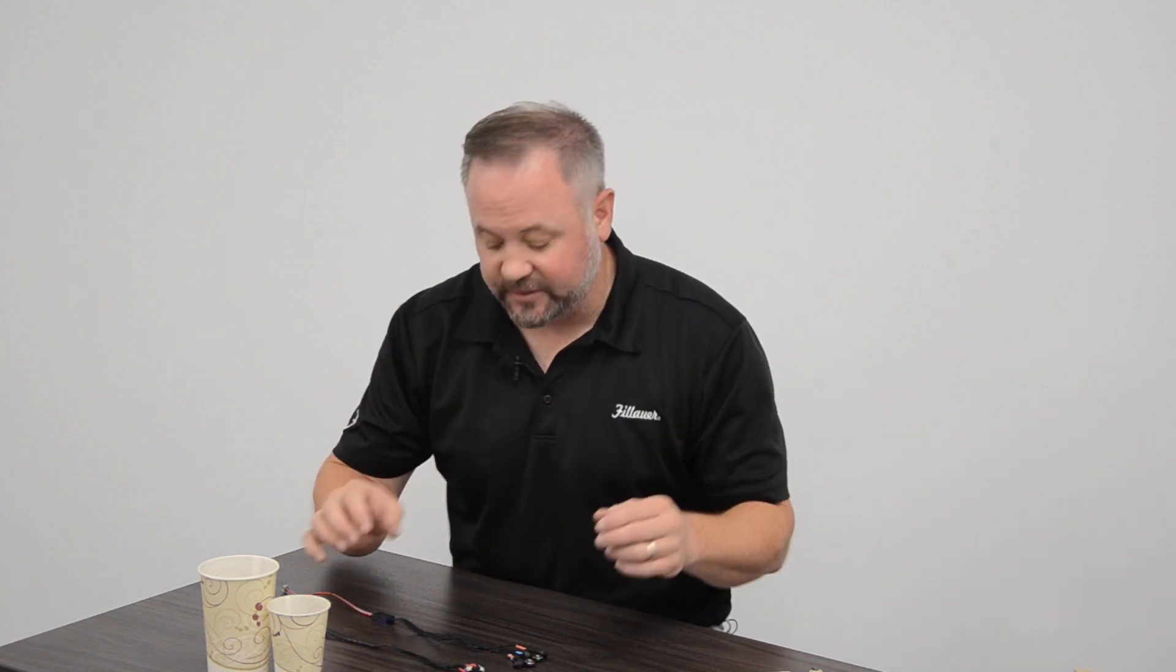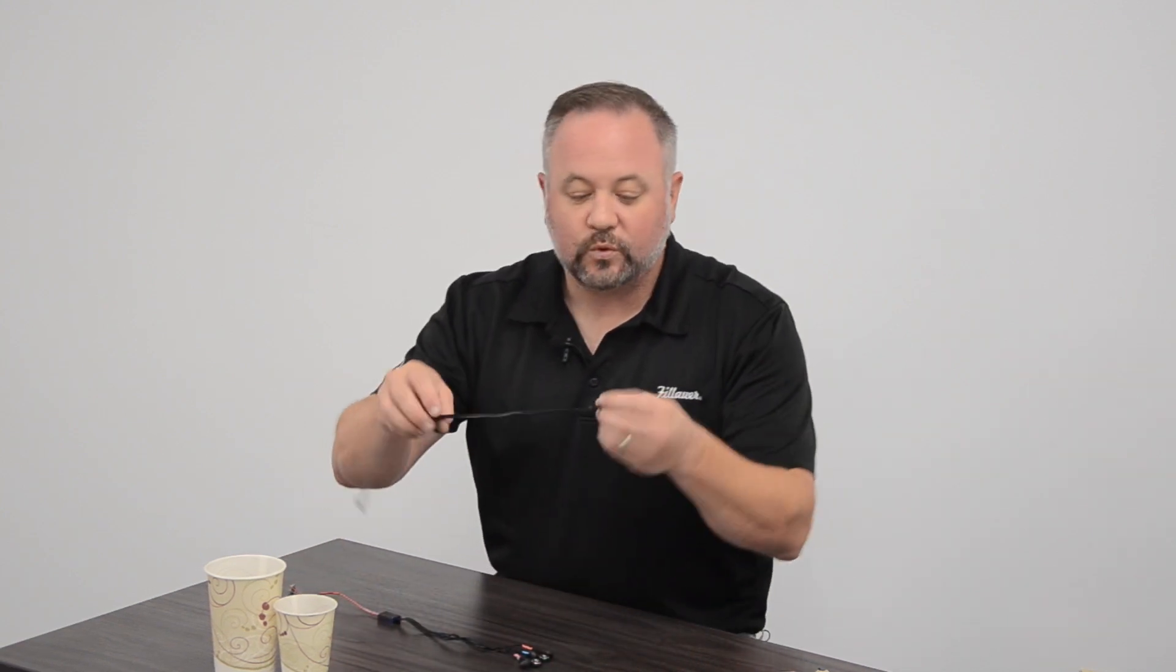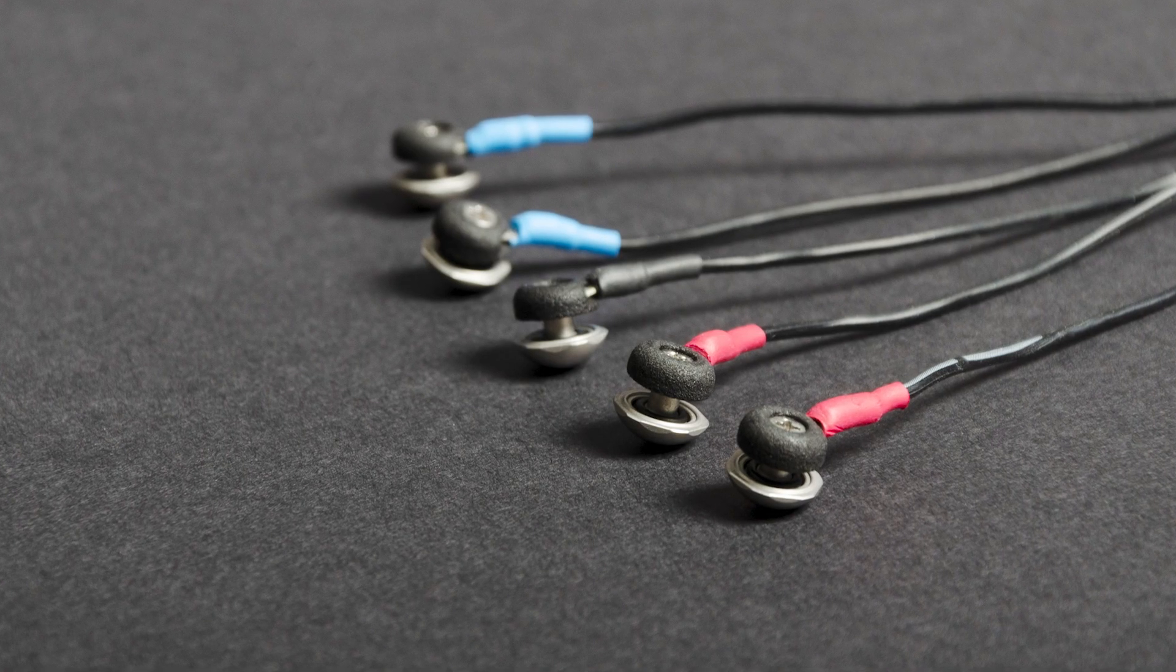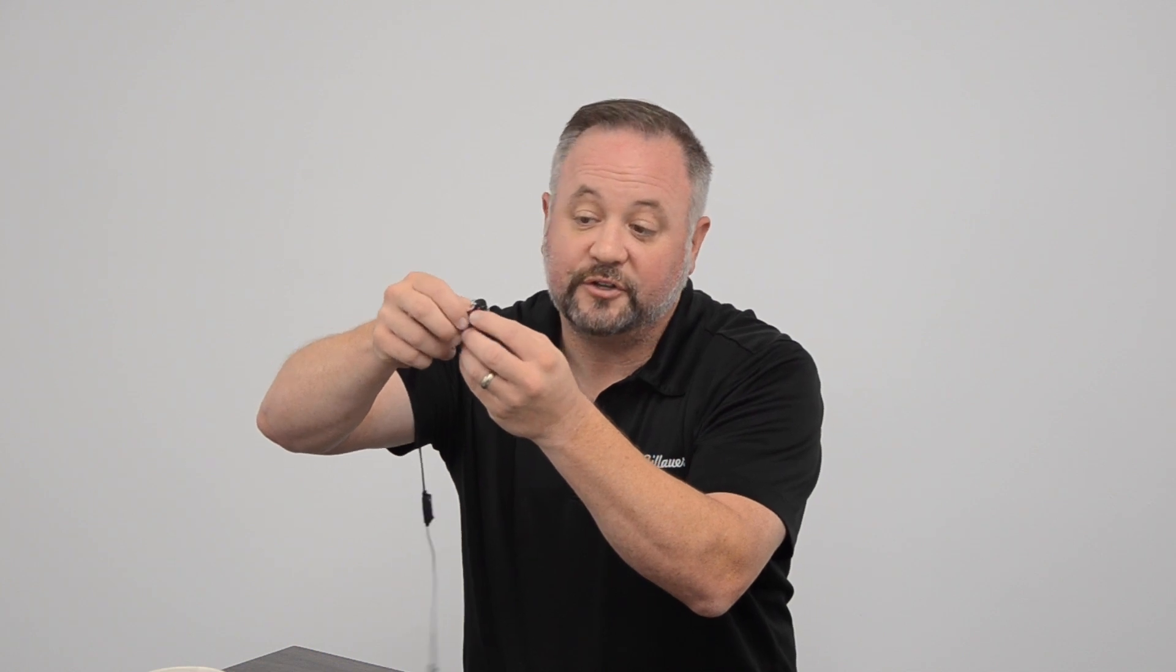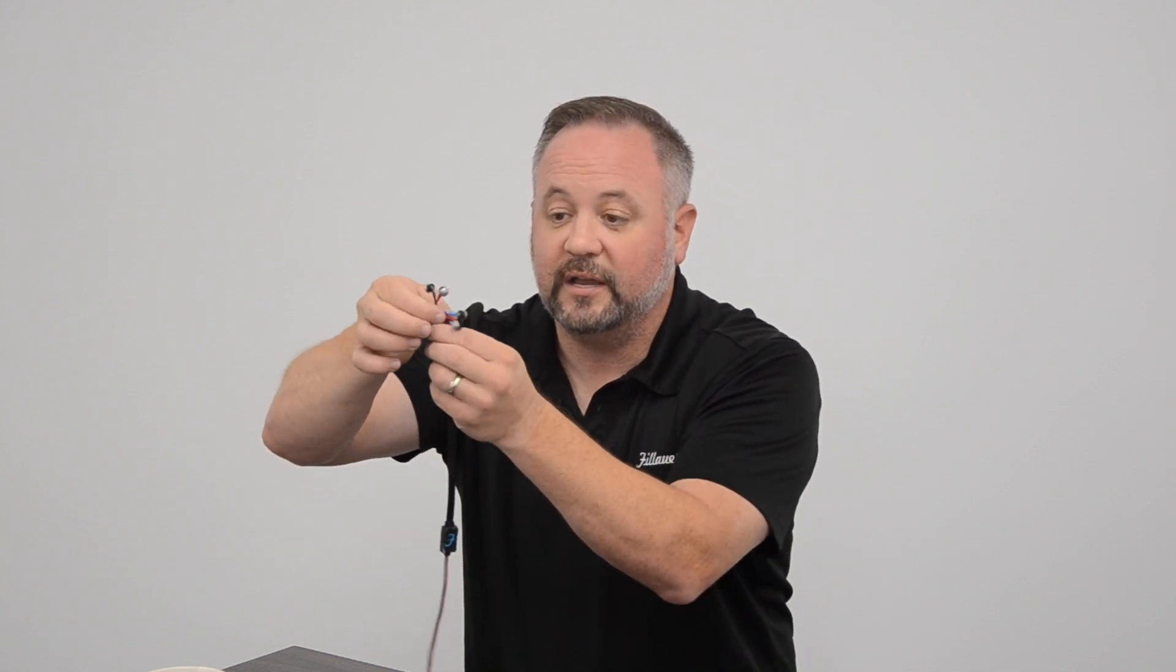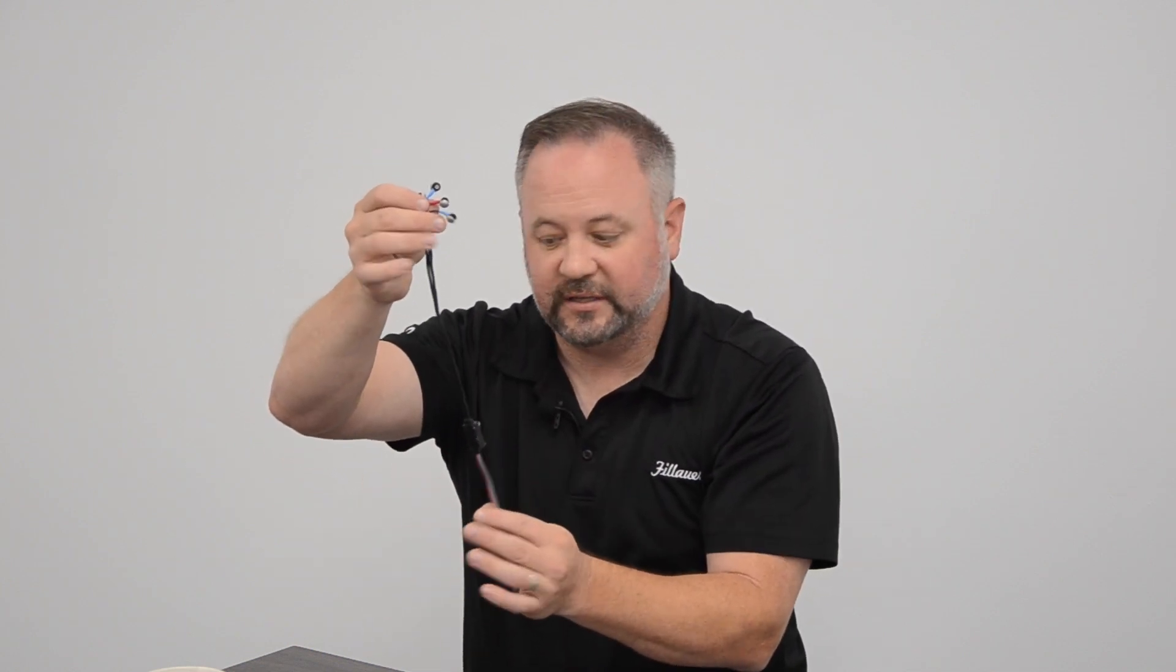With this design, it solves those issues. I've got this one small electrode and wire. This set of five electrodes in one preamp is going to take the place of two single-site electrodes. So no longer do I have to try to get all of that into one socket. I have this one small device to get down in there.